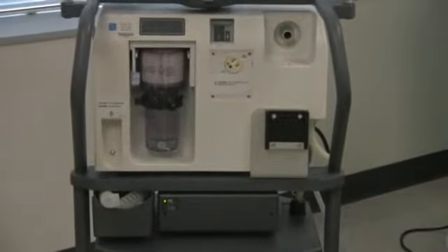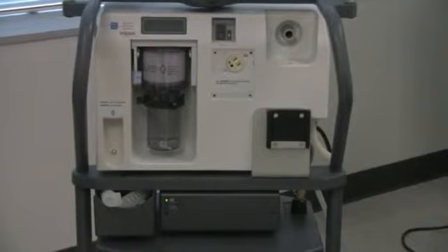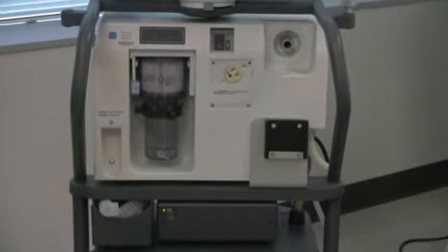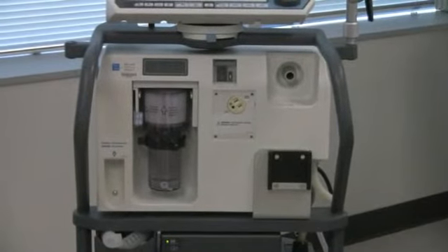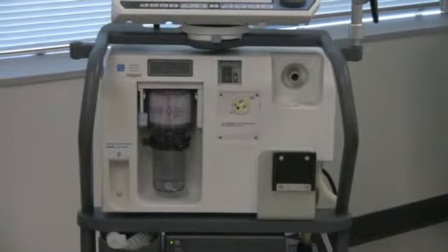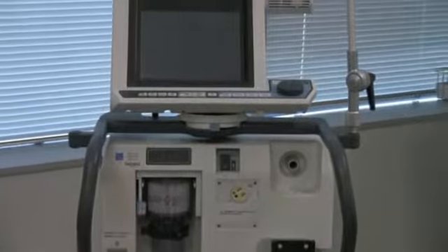By looking at the front panel here, we can see that it has a built-in filter there, just like the 7200. That would be the equivalent of the one that's actually up underneath. It has a couple of other outlets there, has an additional plug on the front if you should need to plug a humidifier in, you can do so there.